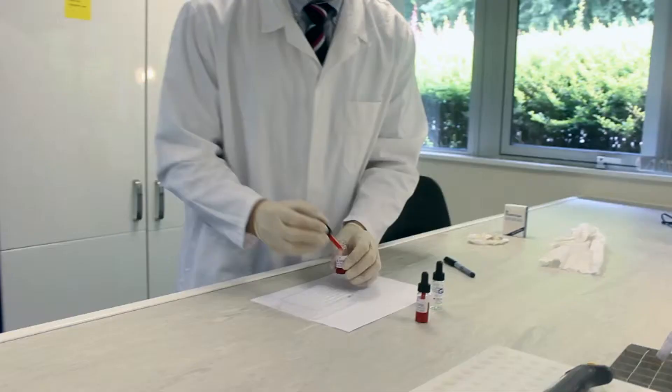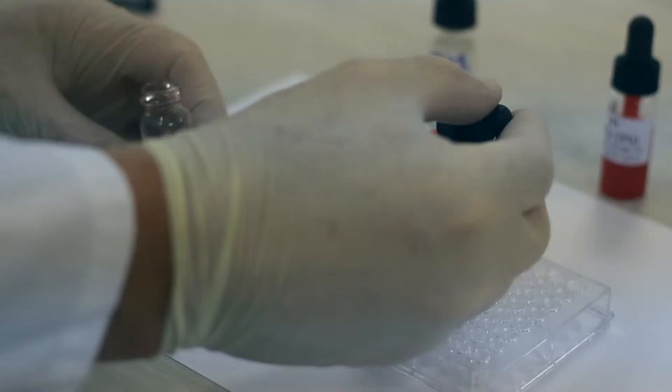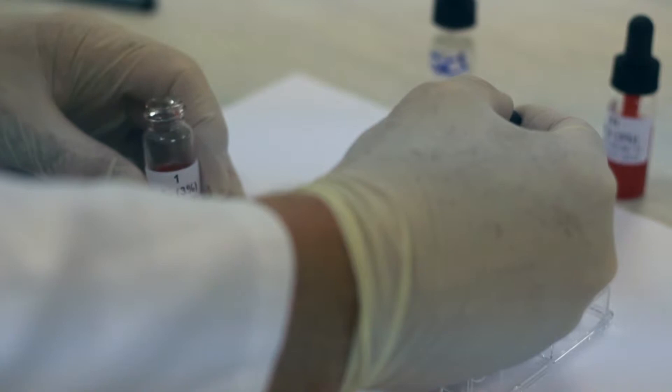One drop of cells from the first sample is put into the correct well. This is repeated for the second sample.